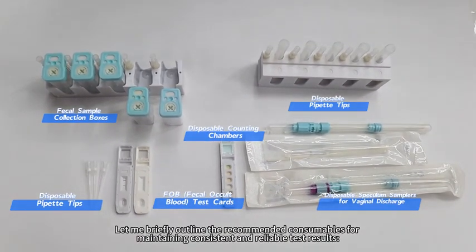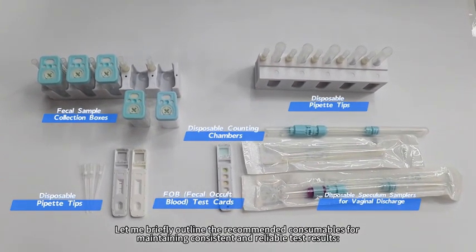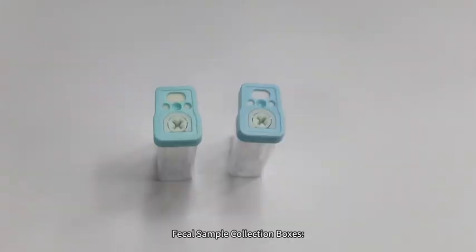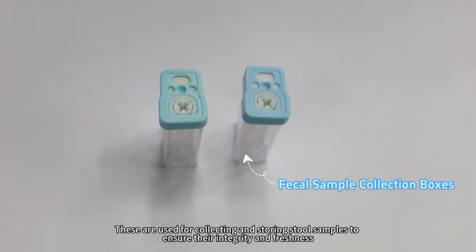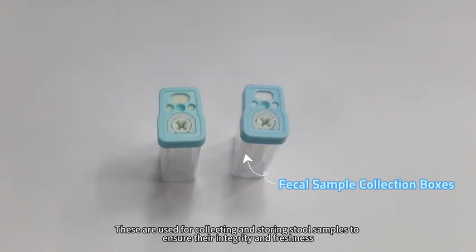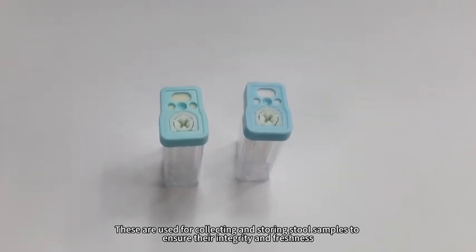Let me briefly outline the recommended consumables for maintaining consistent and reliable test results. Fecal Sample Collection Boxes are used for collecting and storing stool samples to ensure their integrity and freshness.